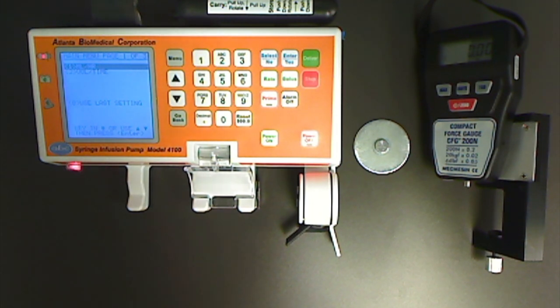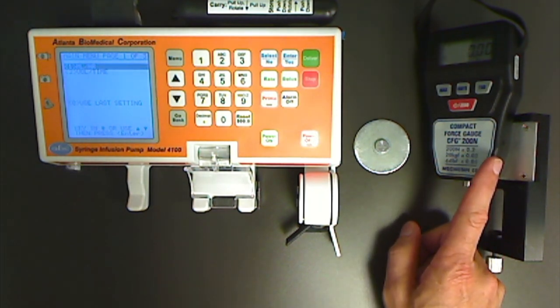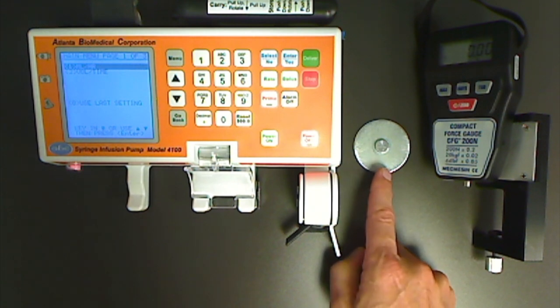This is how you calibrate force on the model 4100 pump. You will need the force fixture and gauge and the plunger disc.